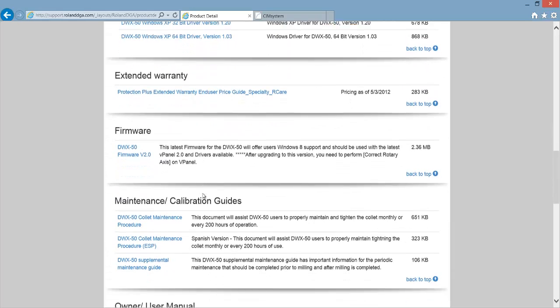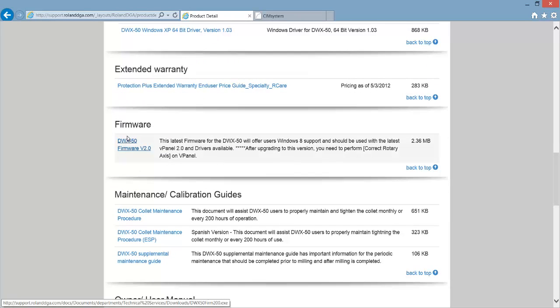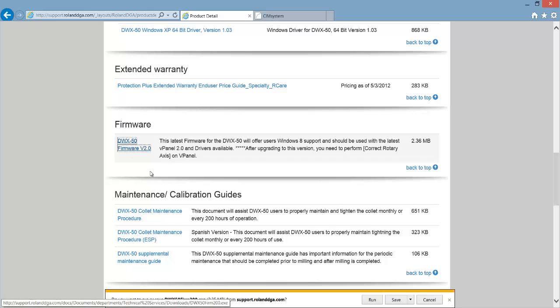Scroll down a little further, there will be a firmware update. Firmware updates don't change that often, so it's probably pretty likely that you have the current firmware already. But if you don't, then you can click the firmware download and then save it.